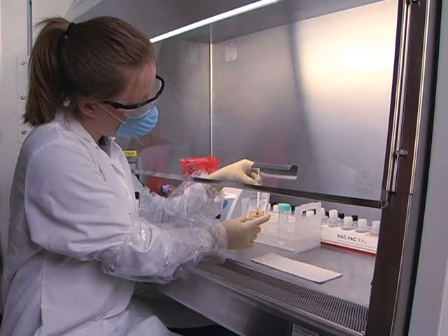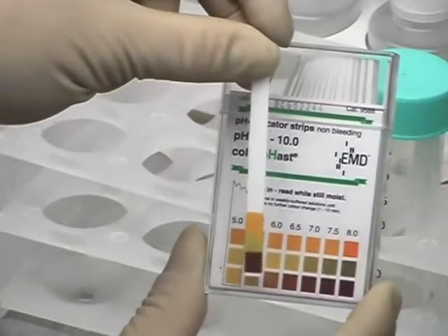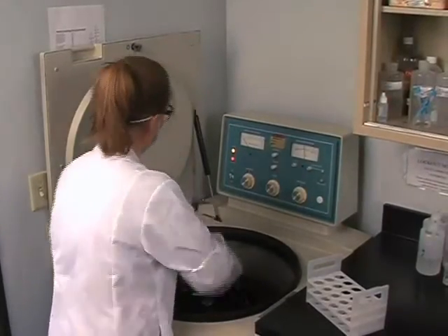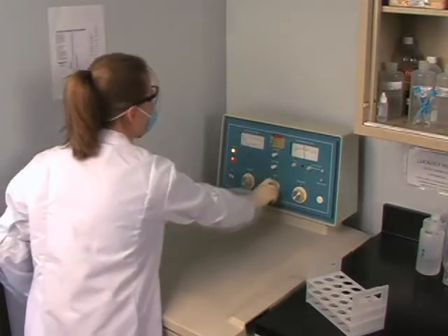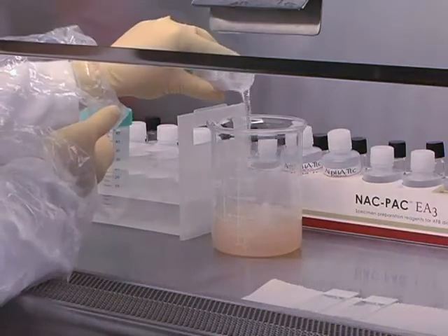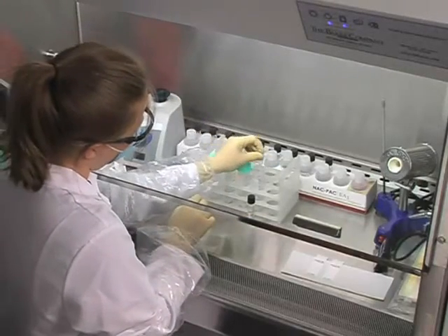In order to achieve specimen consistency and avoid instrument error, it is important to ensure that sterile body fluids are at the required pH. Just like sputum, sterile specimens with slight variations in pH can create false positive results in automated detection equipment. Even slightly acidic or basic samples can generate erroneous results. Centrifuge the sterile specimen liquids at 3000 XG for at least 15 minutes to sediment any mycobacteria that may be present. Working in the biosafety hood, carefully remove all of the supernatant and discard it into an appropriate container holding a proper disinfectant. Be careful not to contaminate the specimens or disturb the pellet. Proceed with adding 3 milliliters of the pellet resuspension buffer to the specimen pellet and inoculating all slides, media, and bottles as described for respiratory specimens.